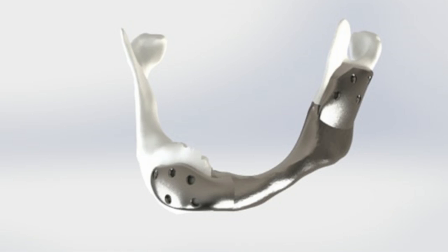In this way, the implant retains its strength while the prosthesis still feels light for the patient. Comparable weight of bone is approximated.